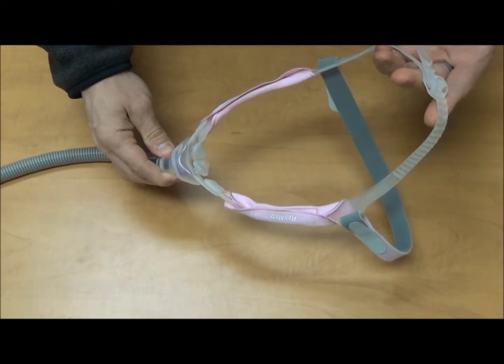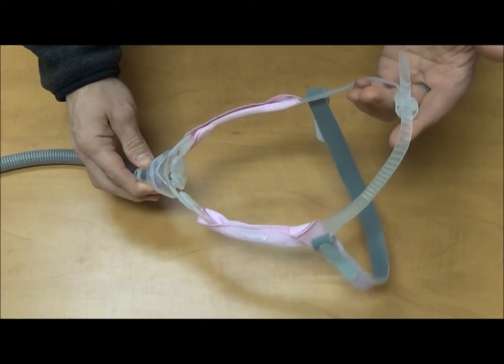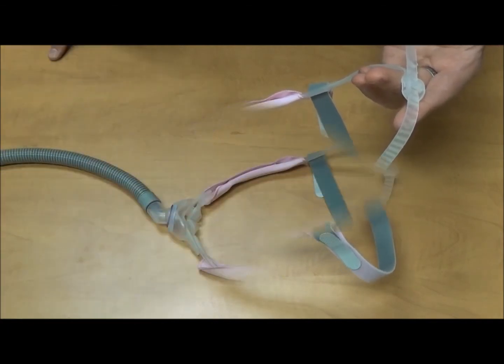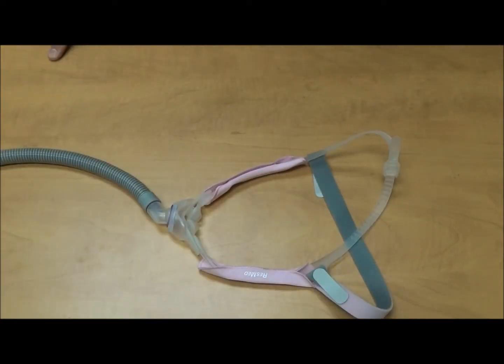And there, we have turned the ordinary Swift FX into the Swift FX for her. In the next segment, we're going to turn the Swift FX for her into the Swift FX Nano.